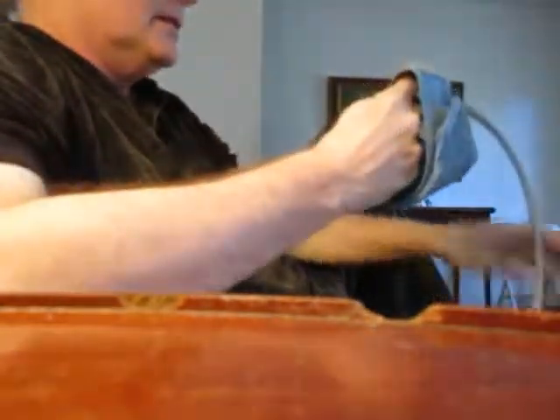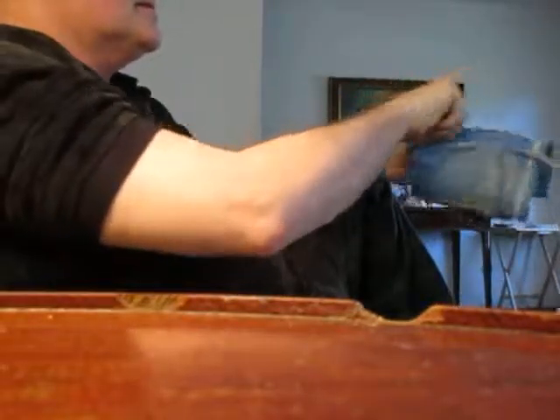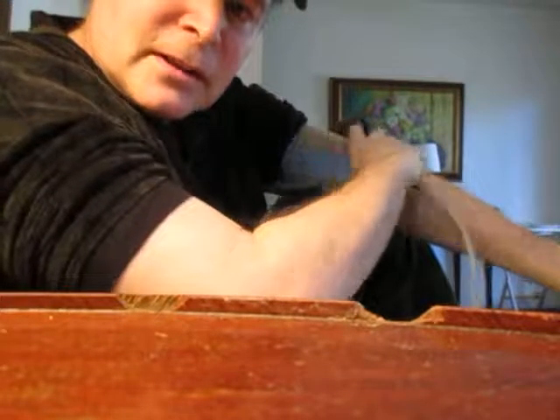Now I'll switch — I'll show you something. I'm going to switch them around. I'm going to put the one that was high on the right onto my left arm, and put the other one on my right arm. I'm going to press them both at the same time.